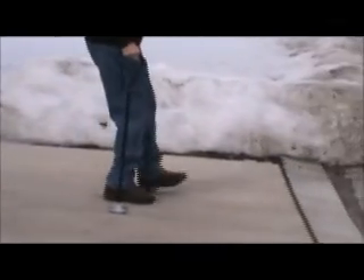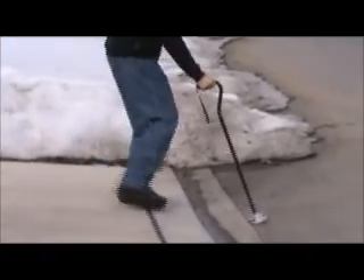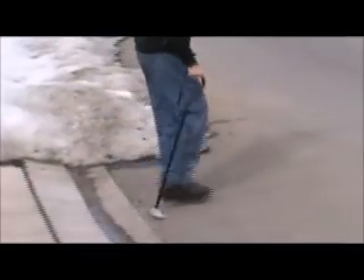It's natural. There's no moving components to it. I don't have to get used to either the spring or the flow of a moving joint, and yet I always have that same solid contact.